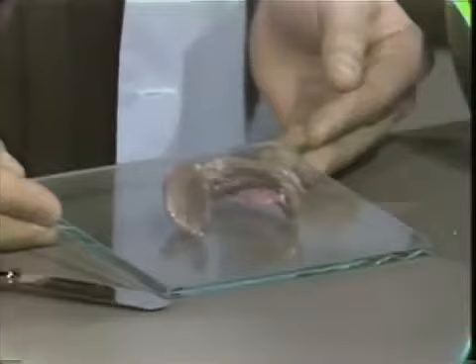Up until this time, I'm sure you have been exposed to the other two methods, which include boxing with wax and using a double pour method. We use this method quite a bit around the school, and it is one of the easier methods to box a final denture impression with. I'm going to begin today with the lower impression and show you the procedures used to box this impression with pumice and impression plaster.